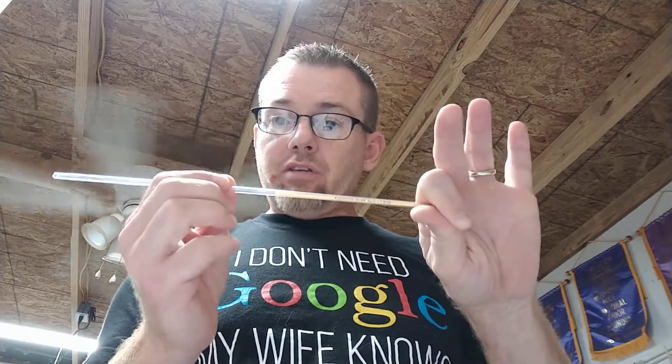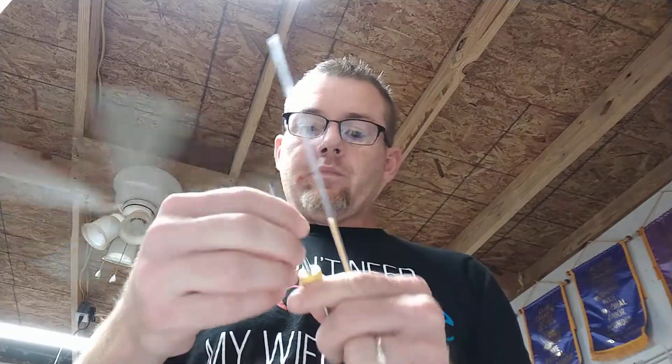Pop pop pop pop — whatever — then put the straw in and insert it. But remember to leave your little donut all the way on there so you can tie it down so it doesn't move and all that good stuff. I hope that helps answer your questions — good luck!